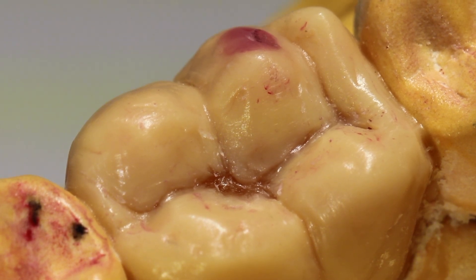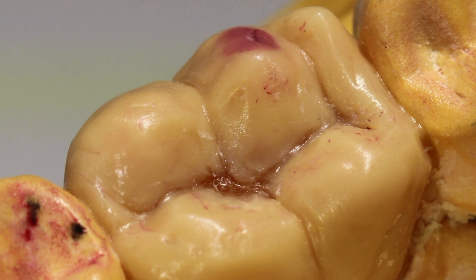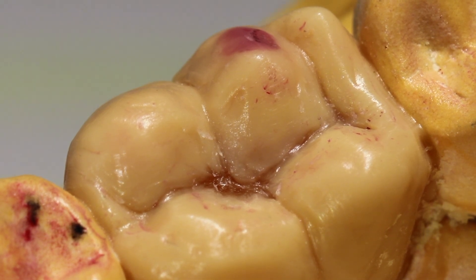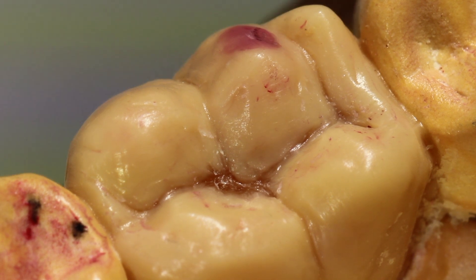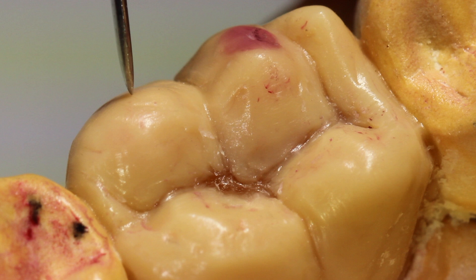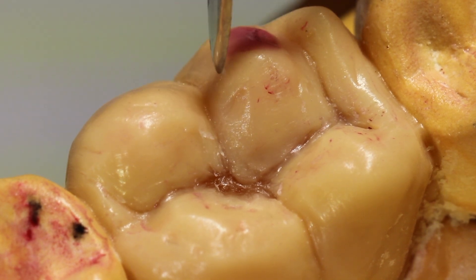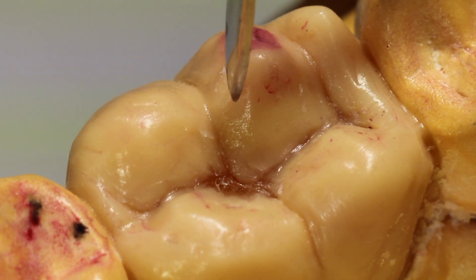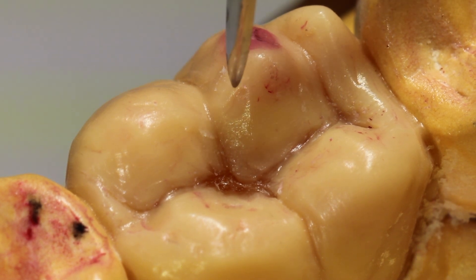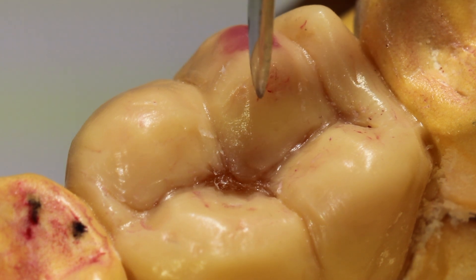The next technique I want to show you is how to polish a tooth. This should really be done at the very end, once you've finished your tooth. By finishing, I mean you've taken away all of the rough surfaces — nothing should be rough. You see this little area here? It's slightly rough there, and that is something I would want to finish before I polish. But for the sake of time, I'm going to show you how to polish this.